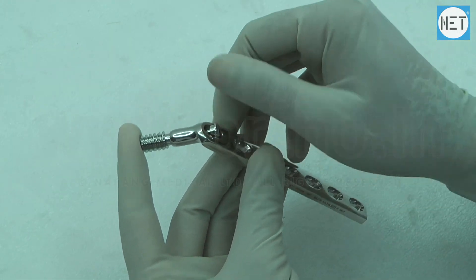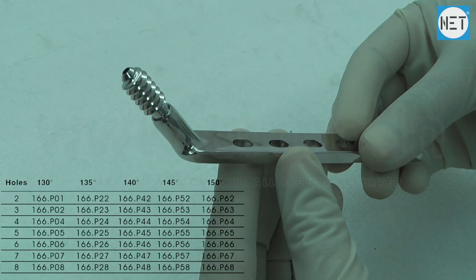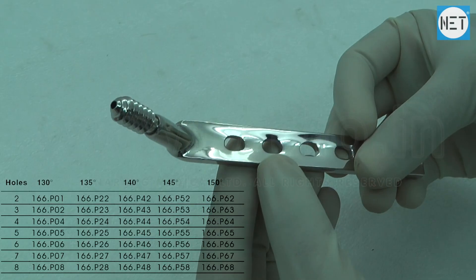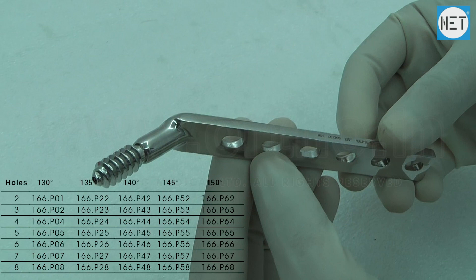These plates are available with number of holes varying from 2 to 8 and having varying angles from 130 to 150 degrees.